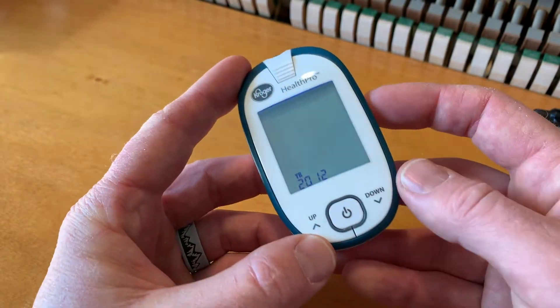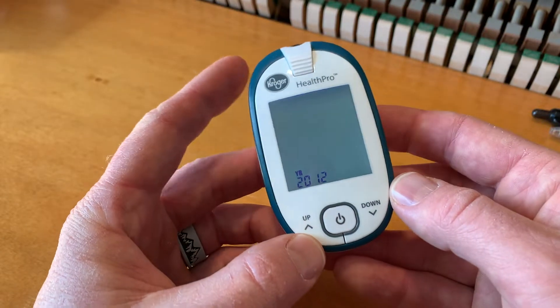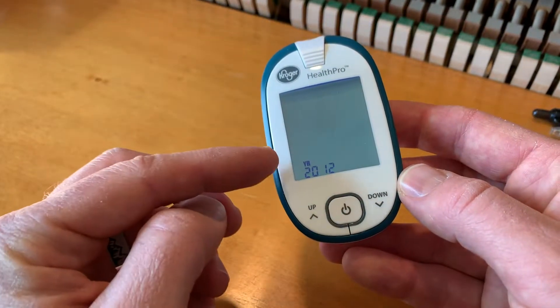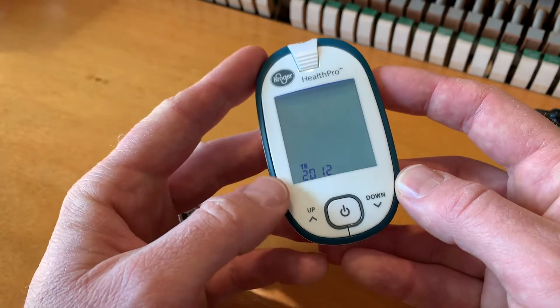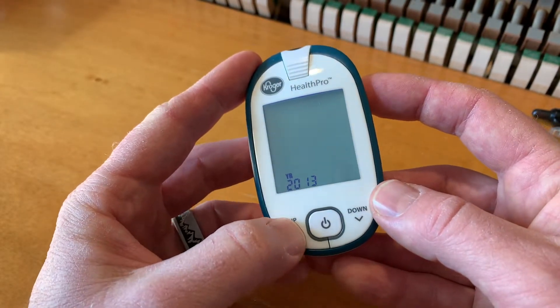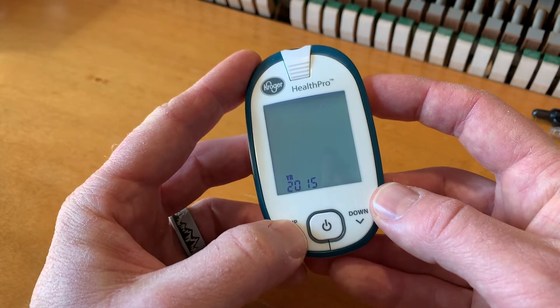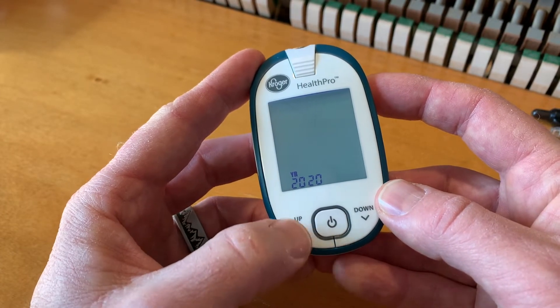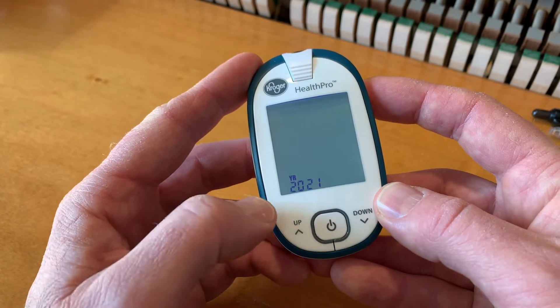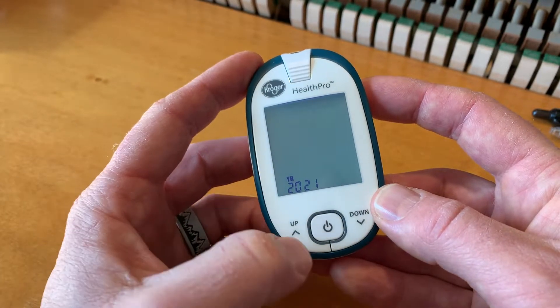I'm going to hit the power button again, and now we're going to go into the year. As you can see, this is on 2012 — I need this to be on 2021. So I'm just going to use that up arrow until it reaches 2021.